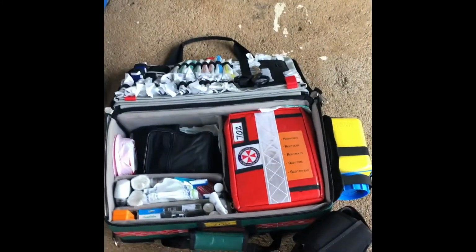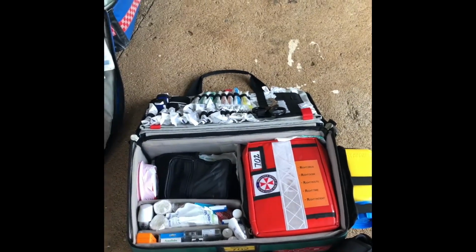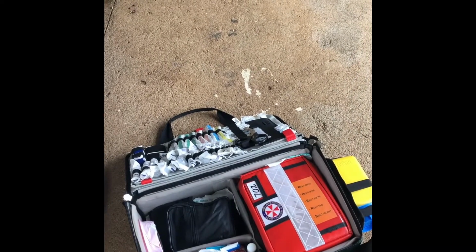The patient may continue to require analgesia, so we'll have our kit ready with all the medications that we may need. We'll hopefully have an ability to do a needle decompression if the whole system fails. Hopefully we'll be able to carry a spare underwater seal drain with us. And we'll have sterile water handy as well if we don't.